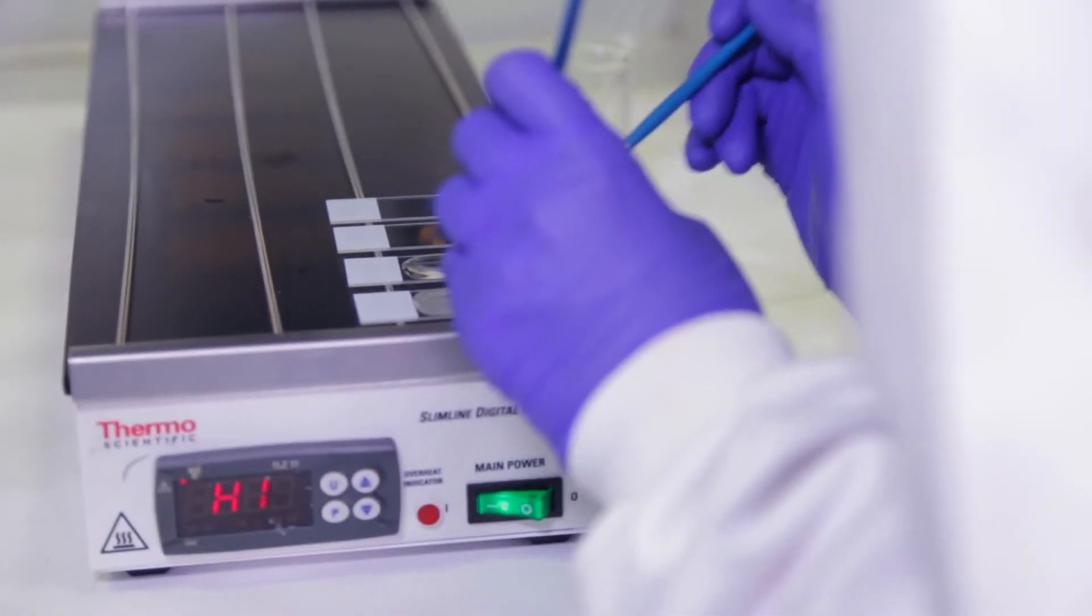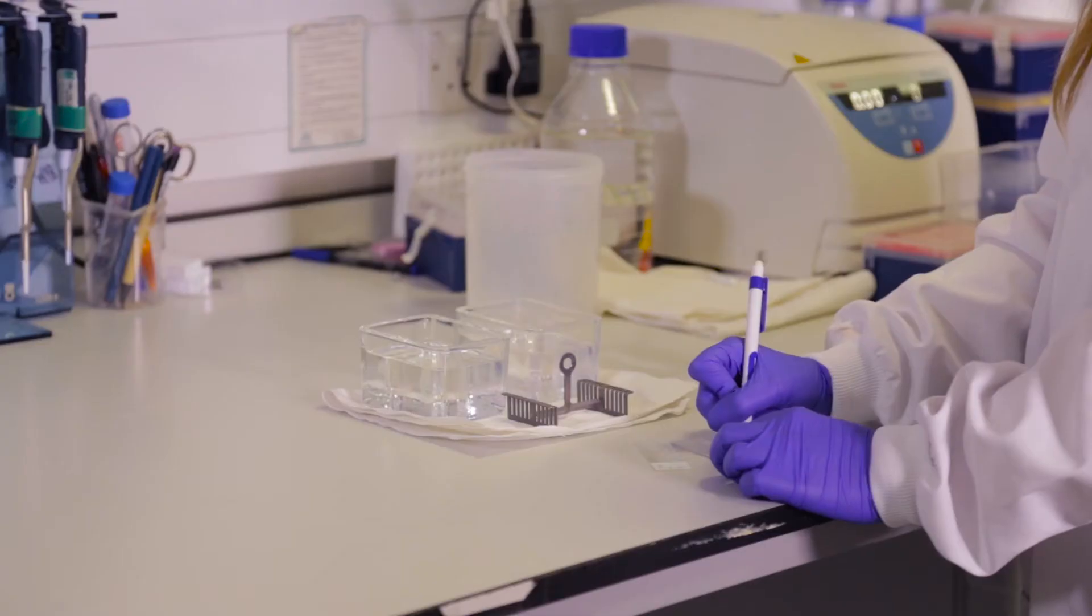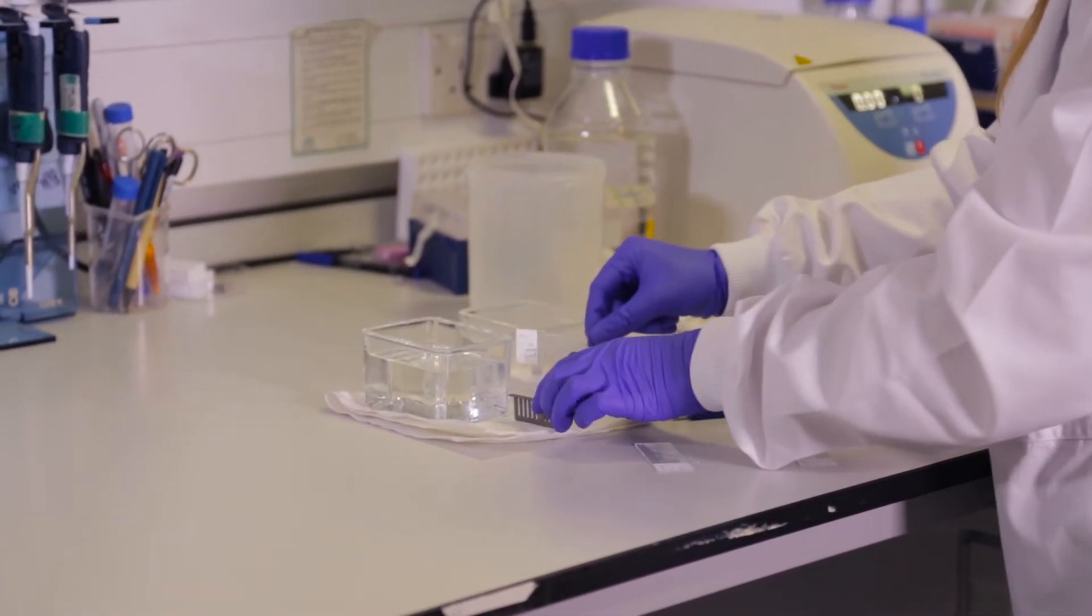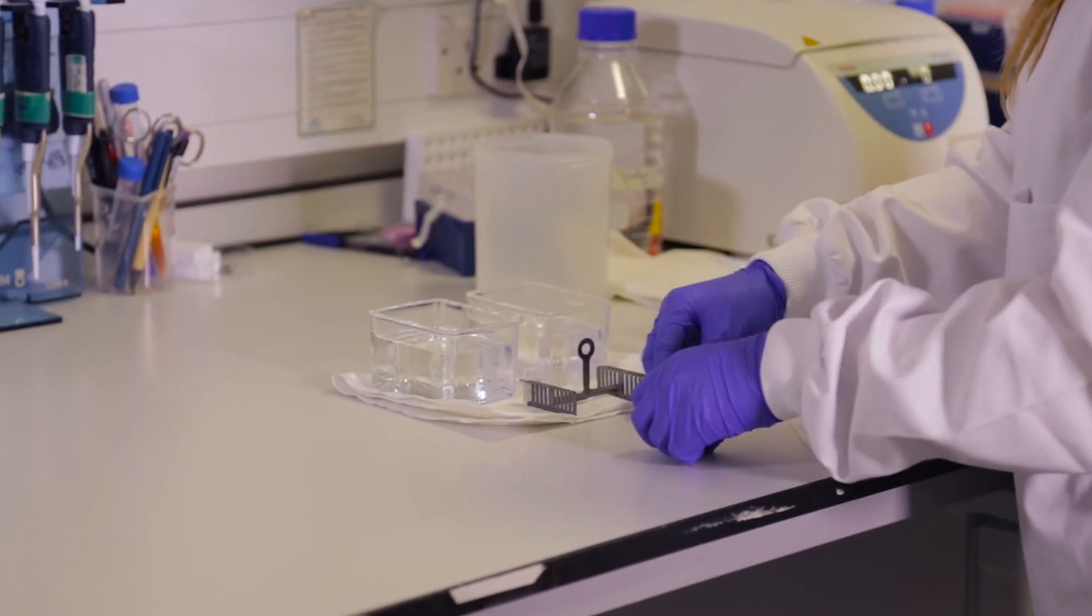After the slides have been drying for at least overnight, you can begin the immunohistochemistry staining procedure. Before starting the protocol, ensure that you label one of the slides as the no primary antibody control.